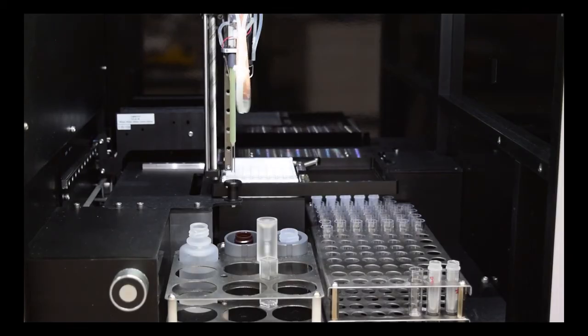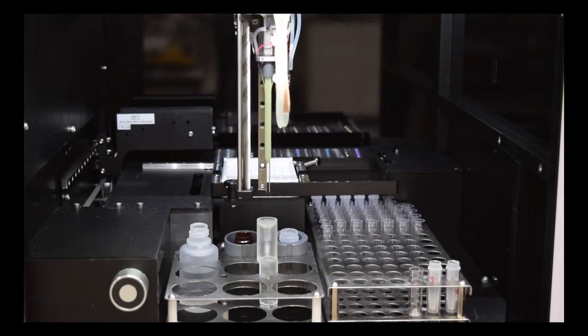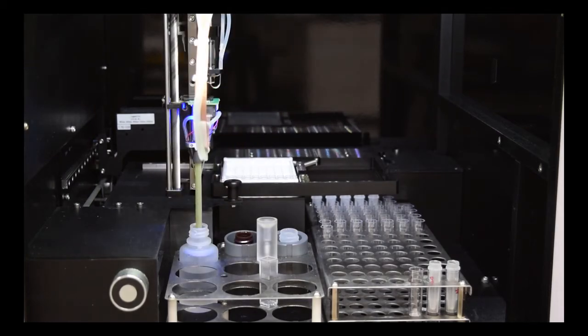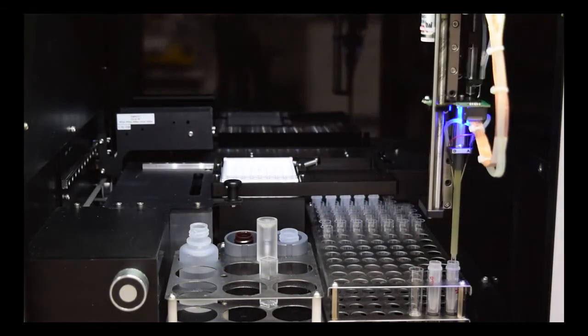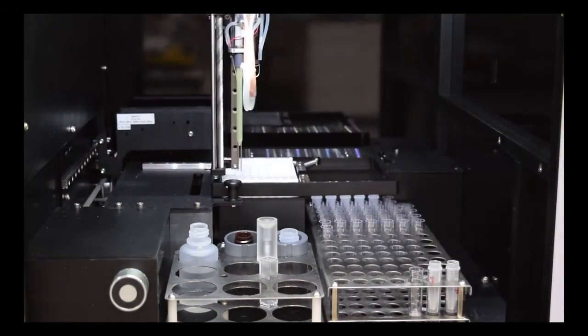Watching the ELISA Pro in action, you can see as it transfers controls and samples from the sample rack to the plate, diluting each with buffer and washing the probe between each sample. Every well is timed individually for each step, ensuring optimal consistency throughout the plate.